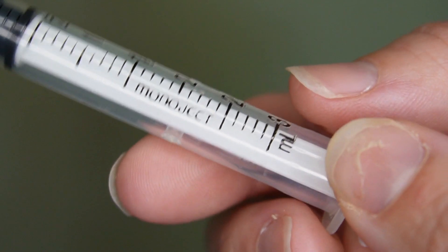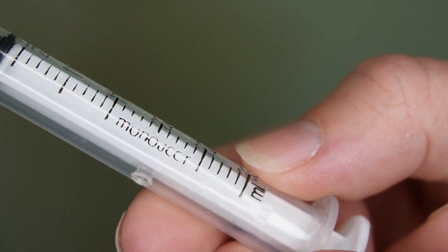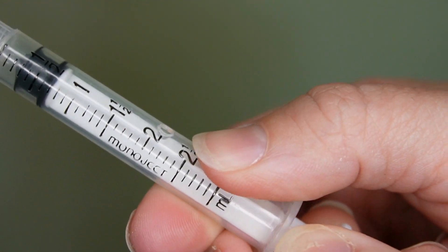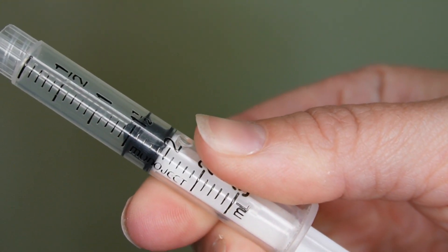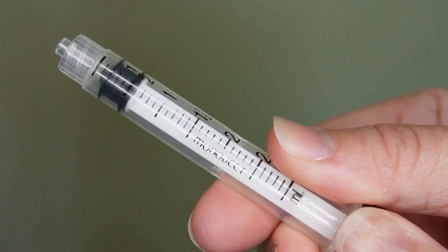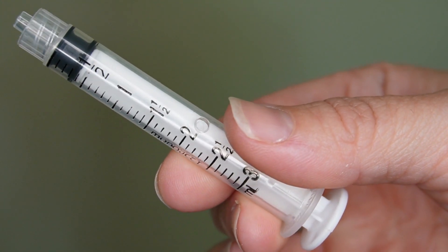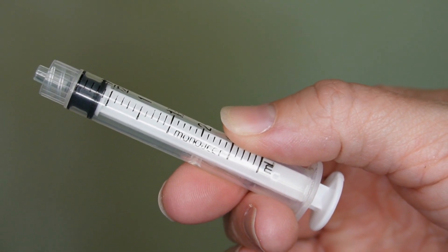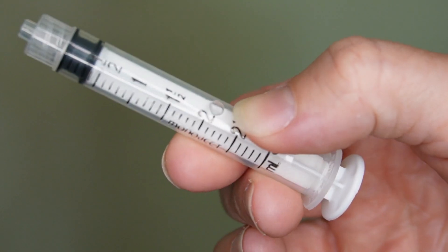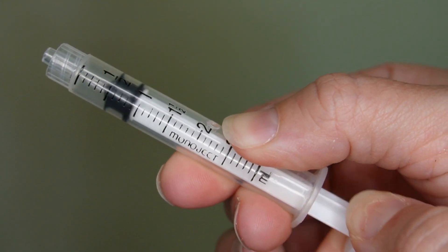Every PA catheter comes with its own unique syringe that is used to inflate the balloon located at the tip of the catheter with air. Do not throw this syringe away. These syringes are unique because they do not allow you to pull back more than 1.5 mLs of air — that is because you should never inflate the balloon of a PA catheter with more than 1.5 mLs of air.